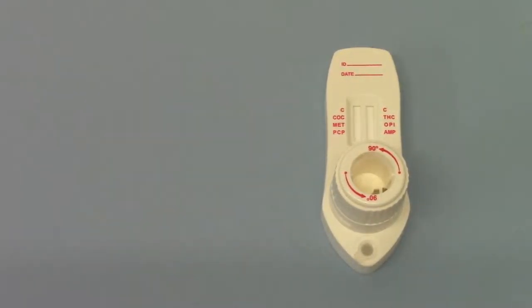Welcome back to part two of this demonstration of the saliva twist device. We're now going to show you the swab which has been completely saturated with saliva.